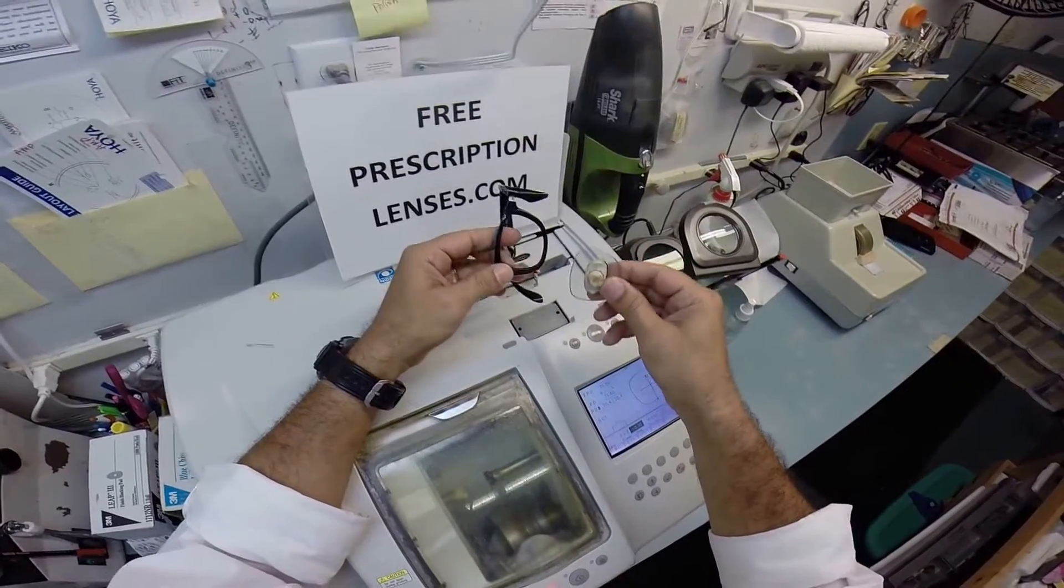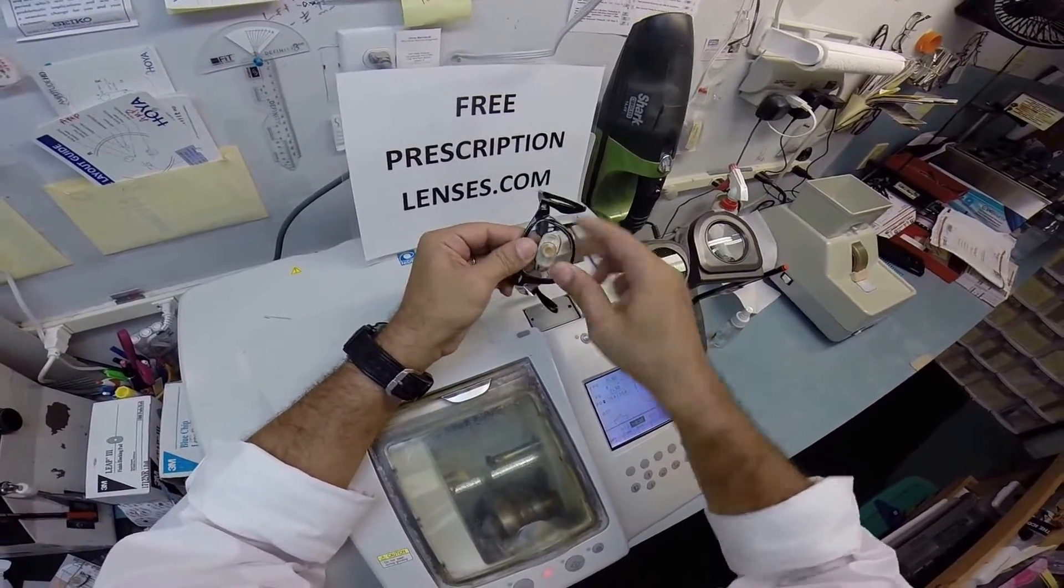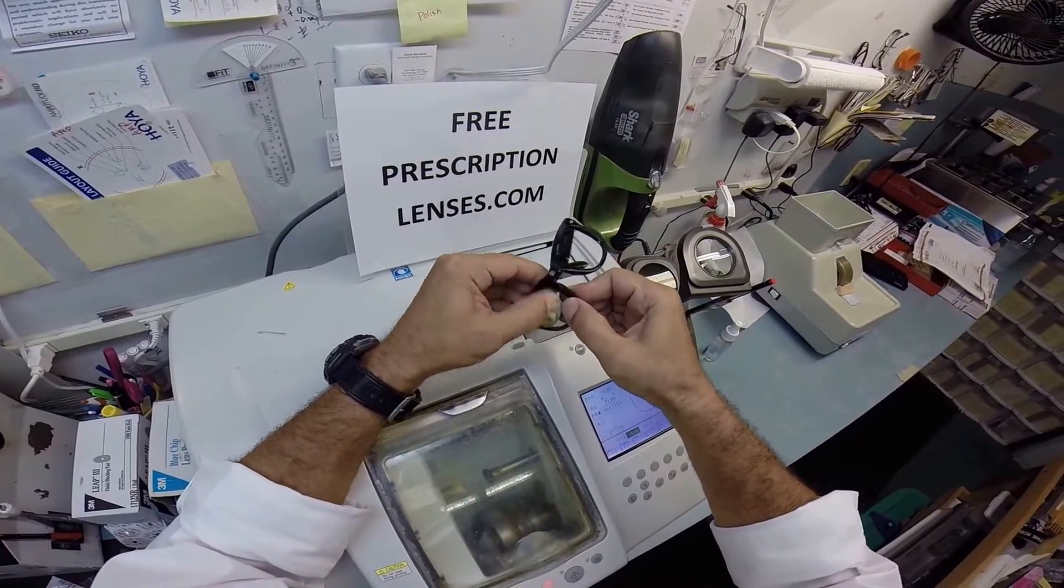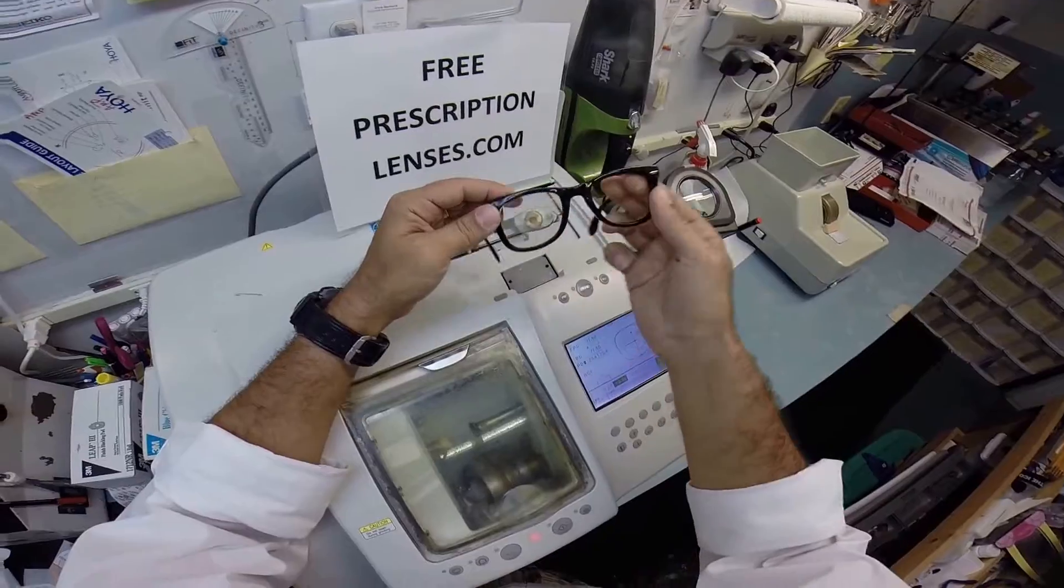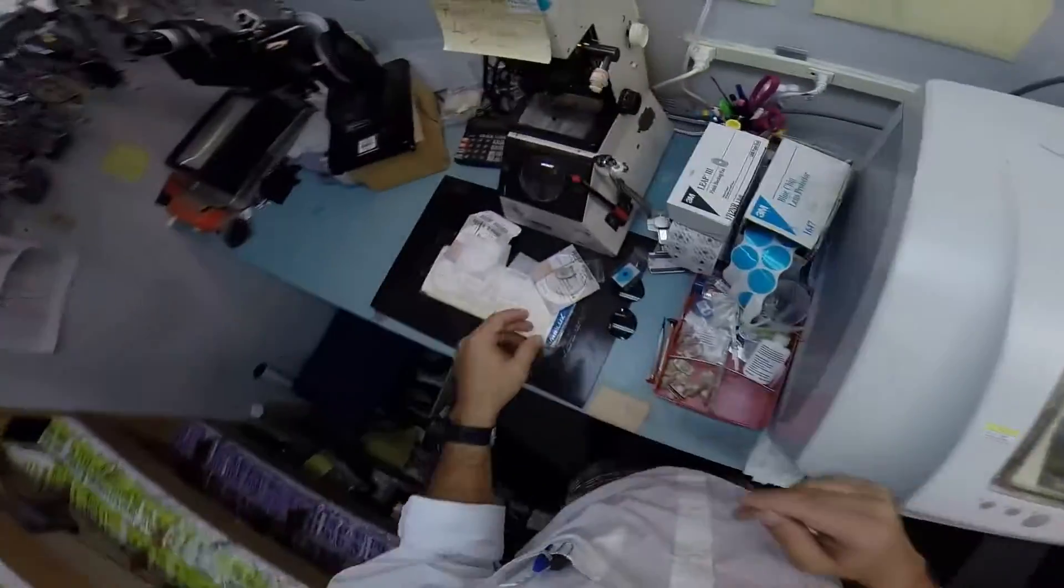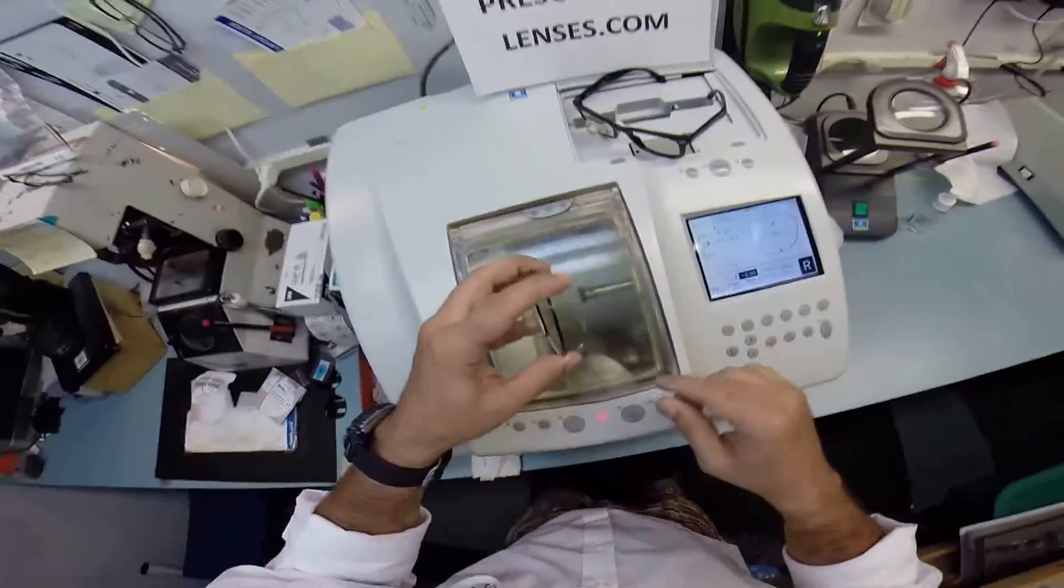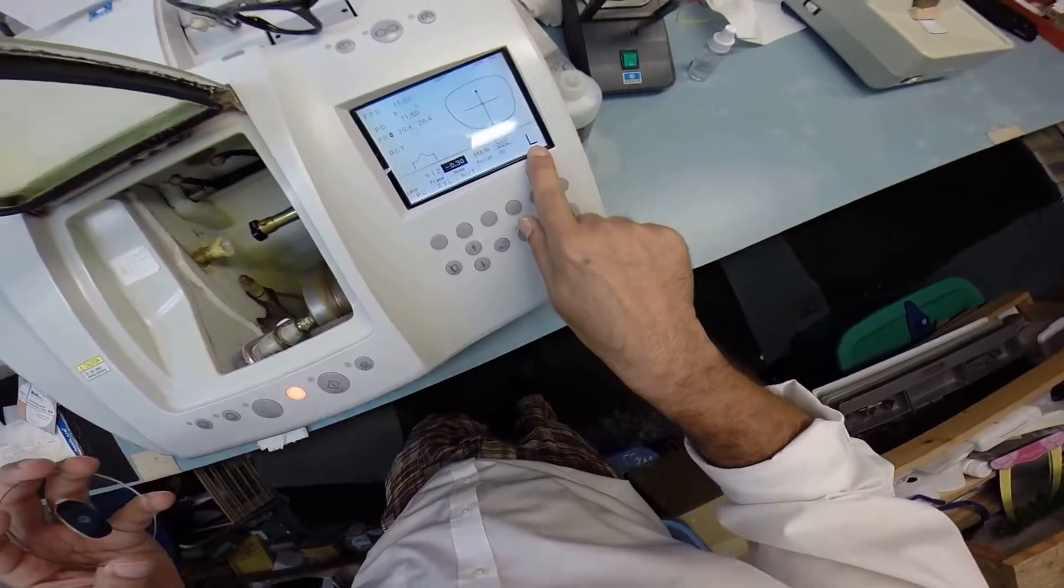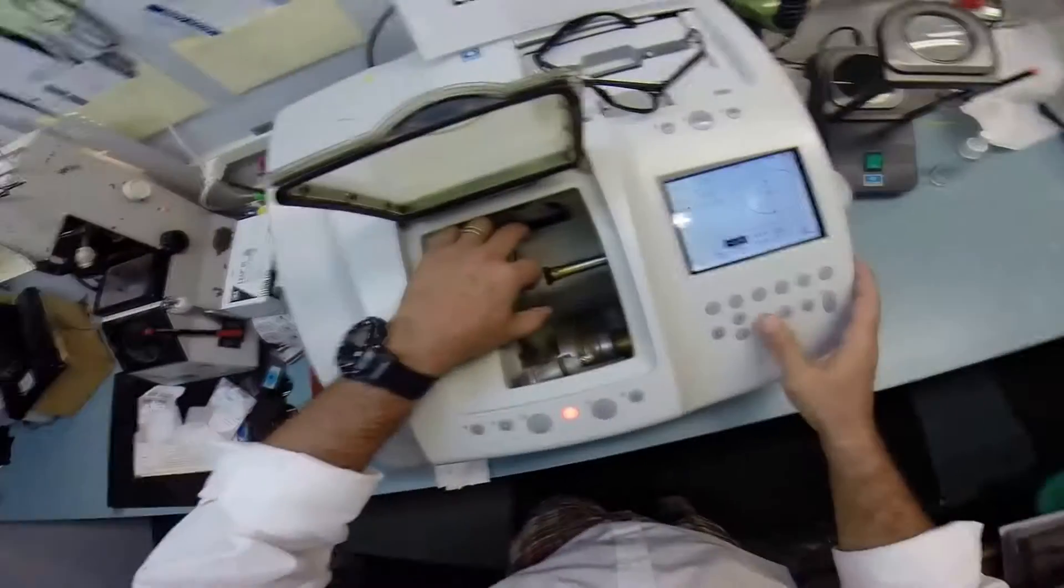This is how we're going to mount your lenses. I'm going to tuck them in at the outside corner which is closest to me, then using my thumbs I press down at the nose and it snaps right in. I knew how much to pre-cut it in advance because I am the Ray-Ban kid. I'm going to flip this over to left, or to L which means not right, and then I'm going to put it into the chuck.